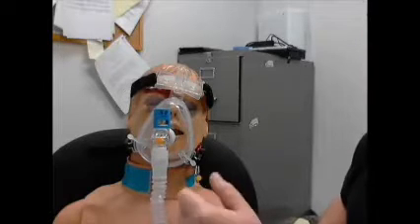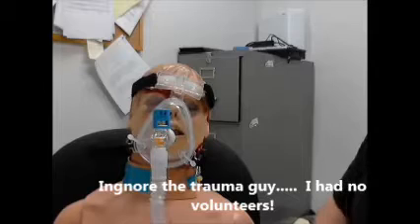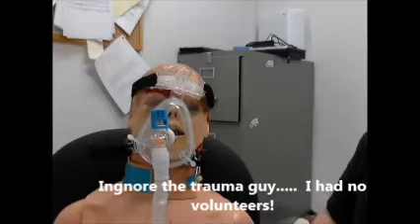I've had a lot of trouble here lately hooking our CPAP tees and nebulized treatments into the CPAP. I'm going to show you a little trick to get those to work.